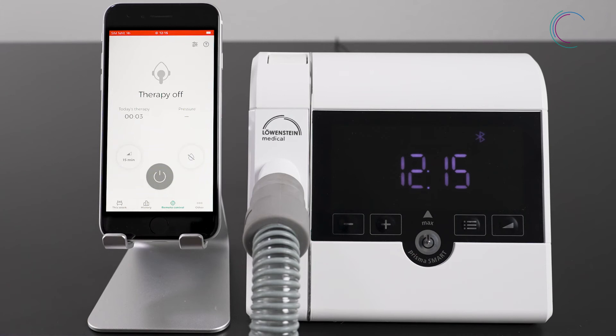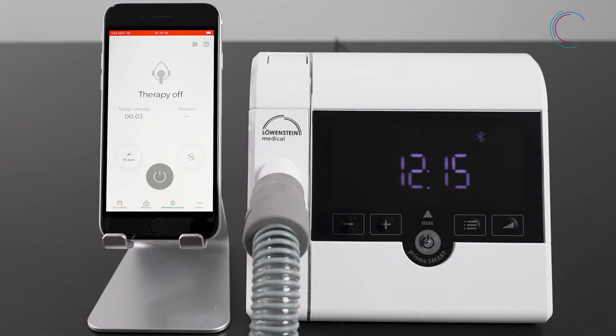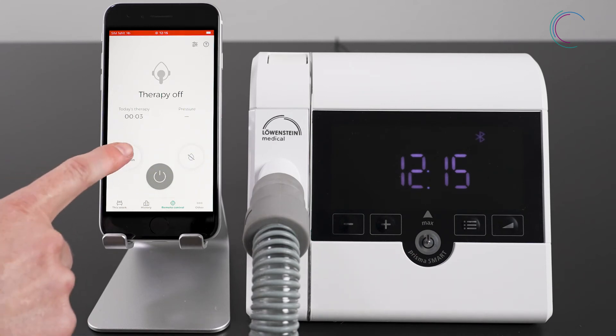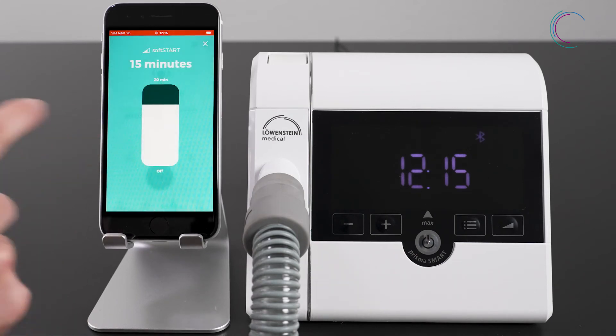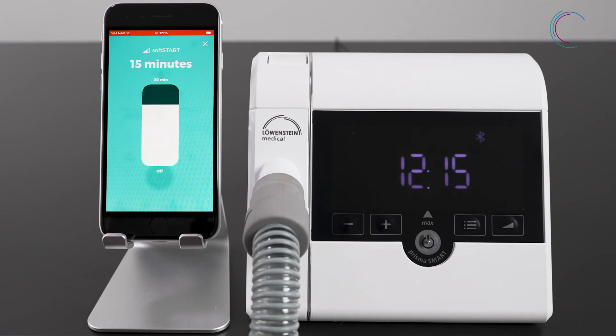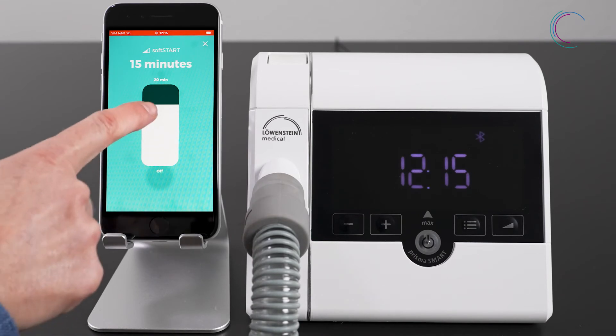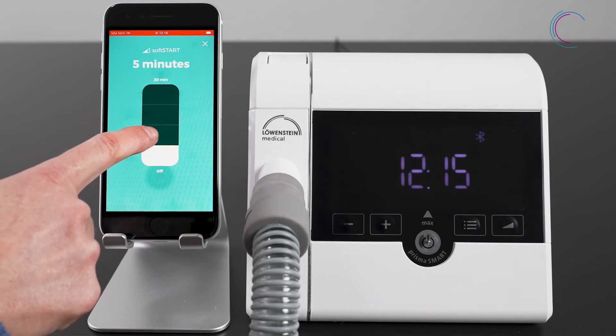Alternatively, you get access to the soft start setting by pressing the soft start button longer. Here you can also set the time.